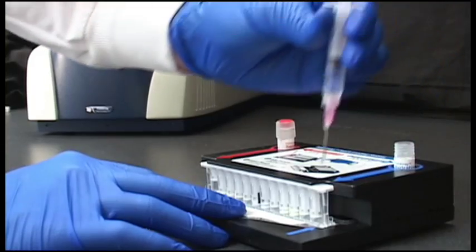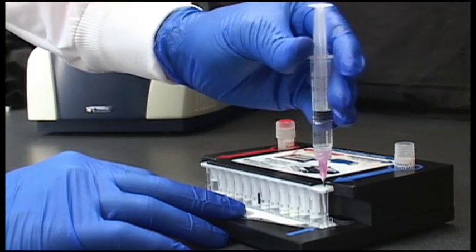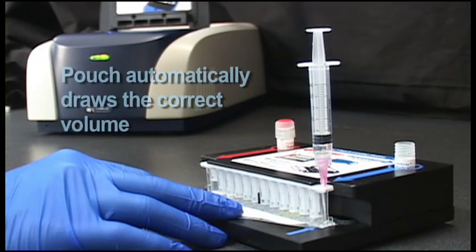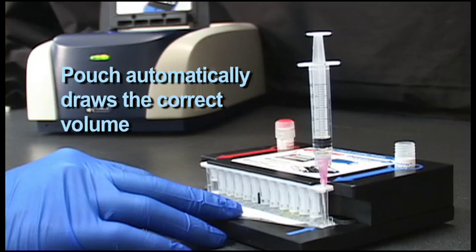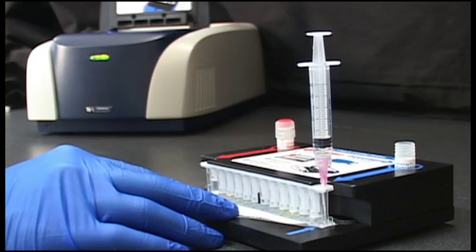Then, hydration solution is injected into the pouch through the blue inlet port on the right. The vacuum in the FilmArray pouch automatically draws the correct volume, eliminating the need for precise measuring and pipetting.